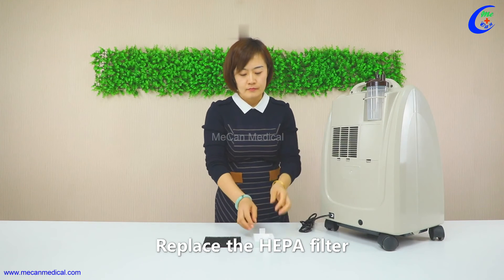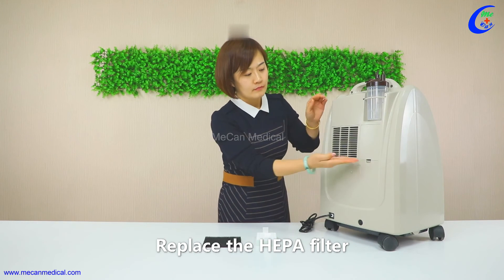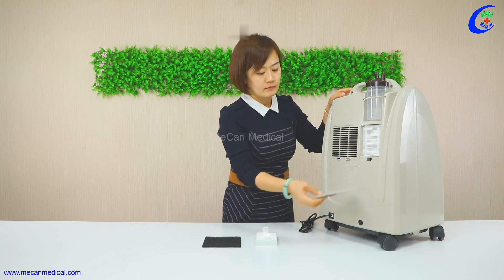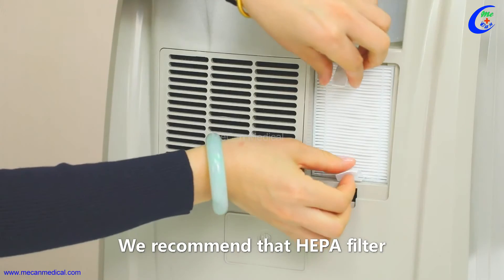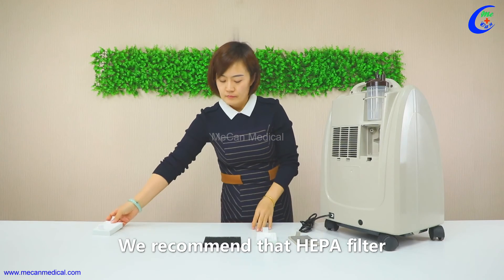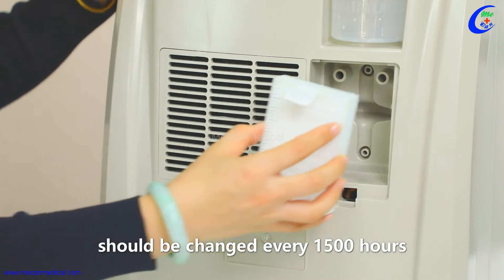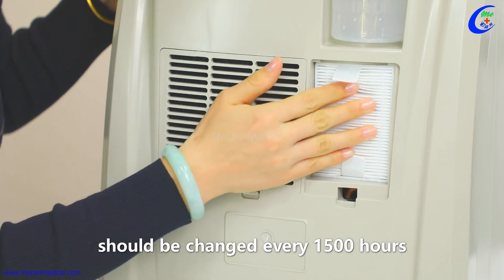Replace the HEPA filter. We recommend that the HEPA filter should be changed every 1500 hours.